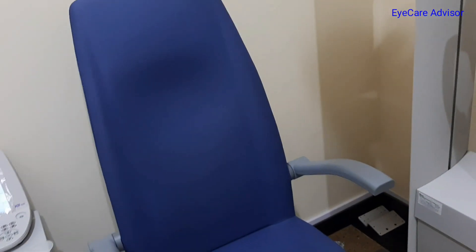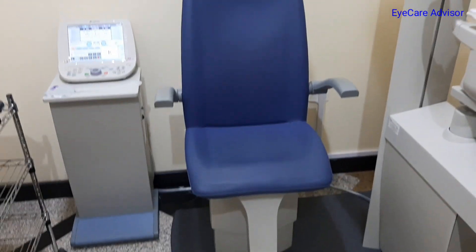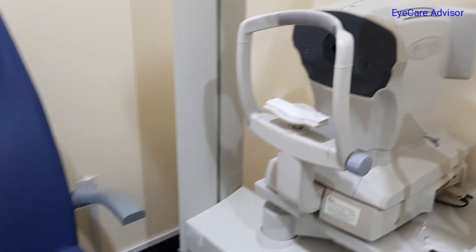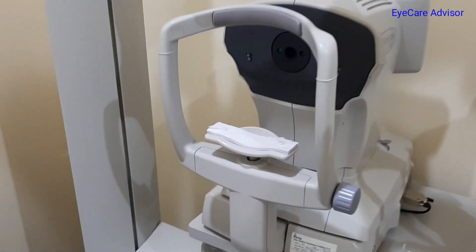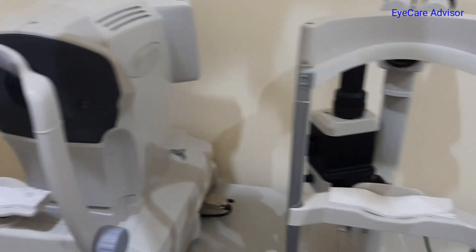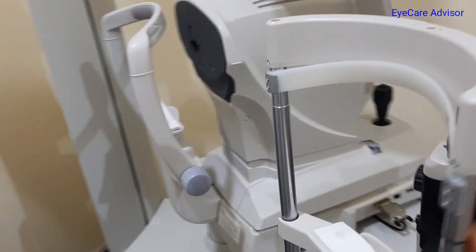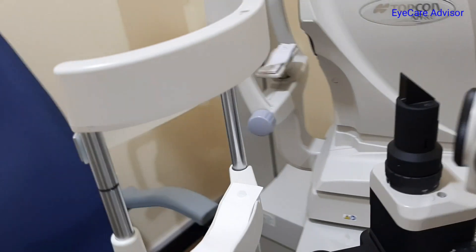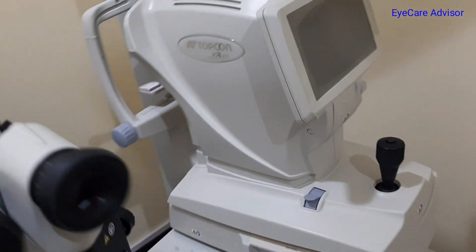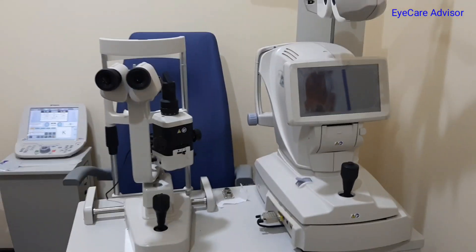This is the chair unit. Here comes the auto-refractor and the slit lamp. All the machines are from the Topcon set, which is what we are using in this clinic.